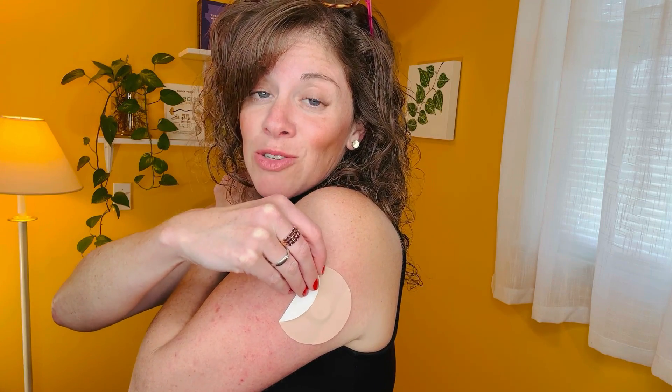These things are not cheap. I always add an overlay patch just to protect it, because otherwise I'm going to rip it off when I'm getting dressed, or even when I just walk by a door frame — I catch my CGM sensors on things. I don't love having to wear overlay patches, but it does help me keep the thing on.